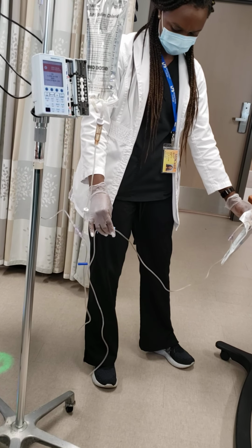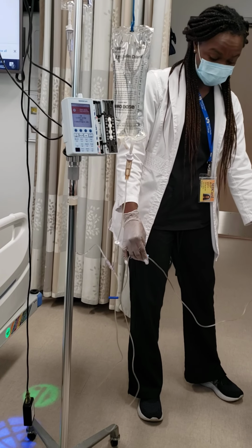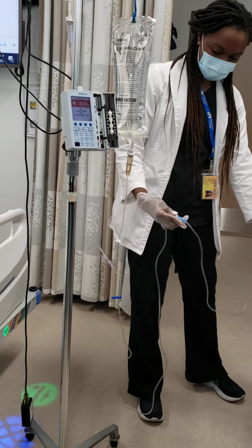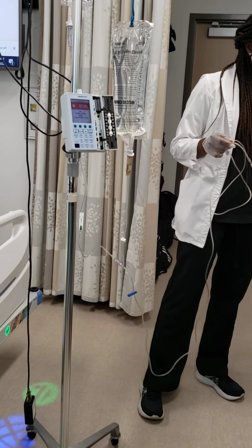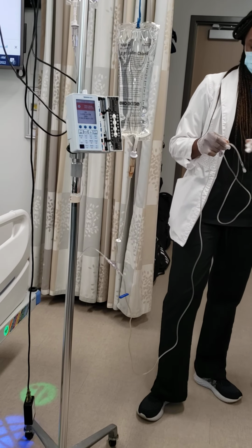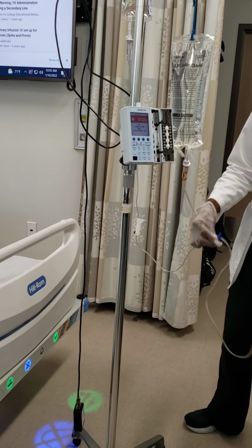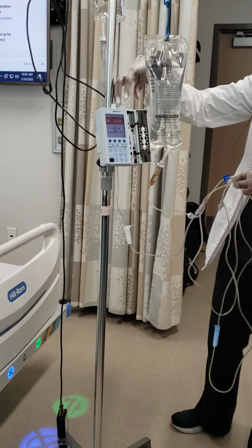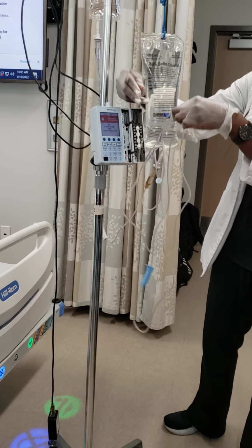So even though sometimes you prime it, let's say for instance the first time, you can't have air bubbles. Sometimes when you prime it, I don't know if the pump forms air bubbles, but you may possibly encounter air bubbles even after you prime, and you don't see air bubbles. That happens a lot. Yeah, I've seen it happen a lot. So let's say for instance you don't do that, you connect it to the patient, you can still find air bubbles. Is this a difference? Yes, above the pump, but the pump will beep. It'll tell you there's an air bubble, as you just saw.